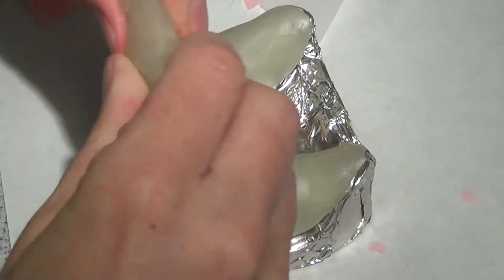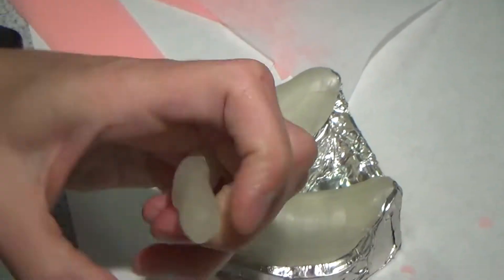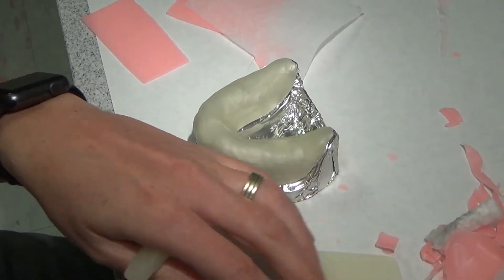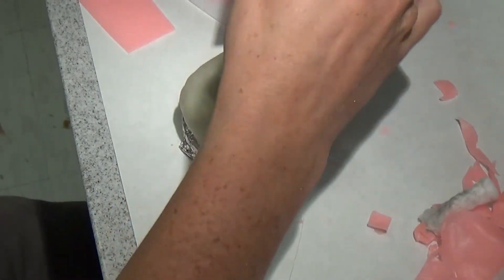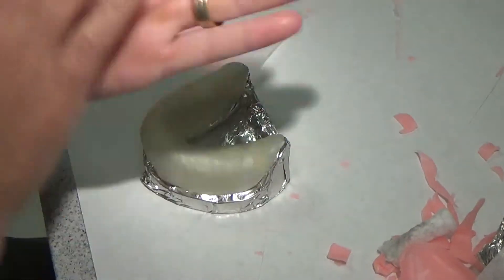So to save some time, get you all going, I'm not going to blend all those areas on the mandible. You're going to want a little bit more than you had on the maxilla for your handle, because your handle is going to extend all the way out. I'm going to put this back in here and use it for my edentulous tray here in a bit.